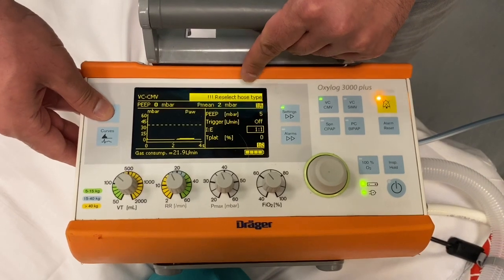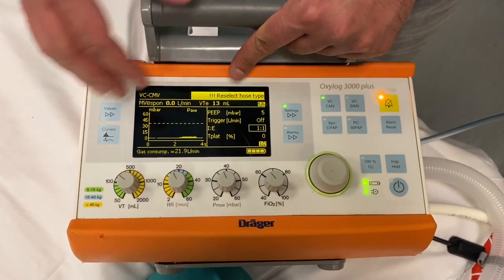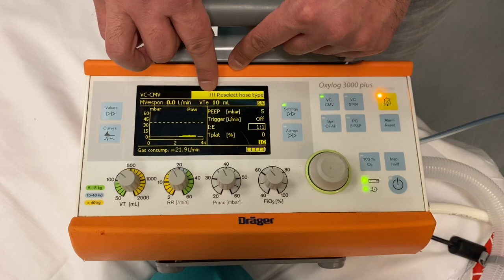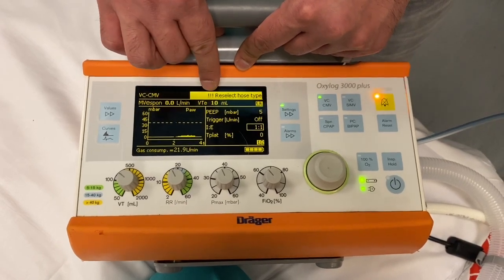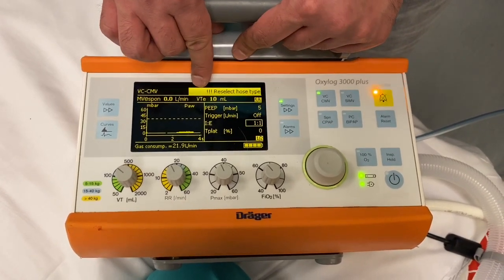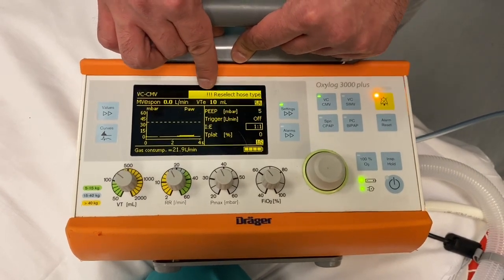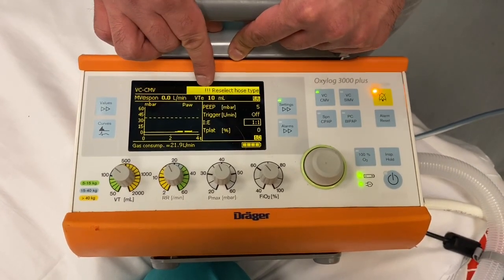Click through the menu until you get to VTE, which is the tidal volume measurement. If you are not achieving your tidal volume at this point in time, you should contact the intensive care colleagues to come and review the patient.